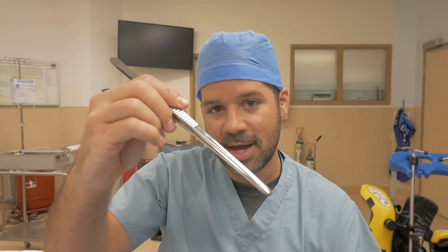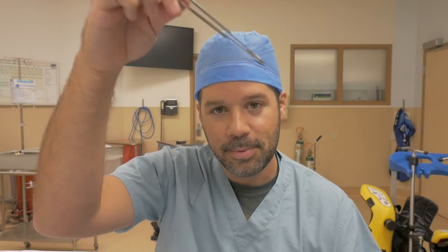Lastly, I wanted to go over a couple of things you may not realize can be used as retractors. We have instruments specifically called retractors — the Richardson, rake, Hohmann, Deaver — but you can basically use anything instrument-wise as a retractor. If you have a forcep in your hand and you're holding on to something and giving counter traction, that is retraction — that is a form of retraction for a surgeon. This forcep can be used not only to grasp tissue, but you flip it around and you have this nice flat end to put in a body cavity and retract tissue for the surgeon. Suction tips — the Yankauer suction, the Andrews-Pynchon suction, any type of suction tip — can be used as a retraction device. The suction tip has many uses: it can dissect, it can suck, and it can be a retractor.